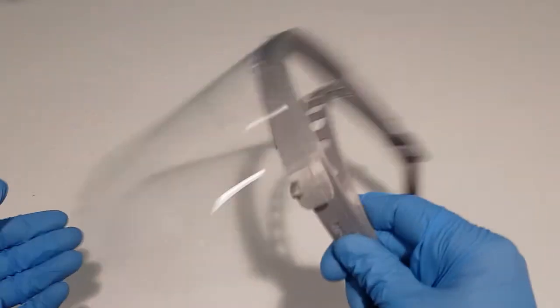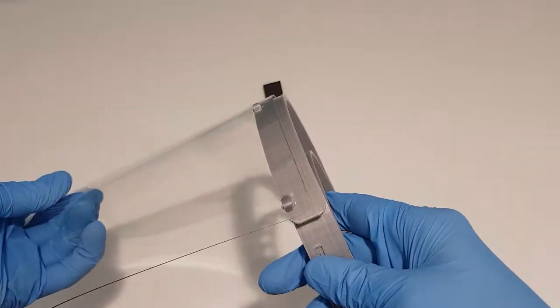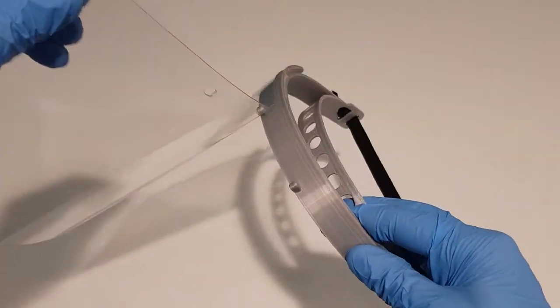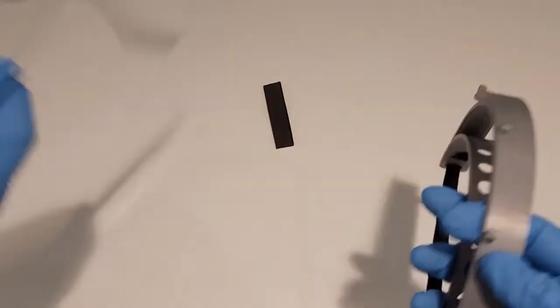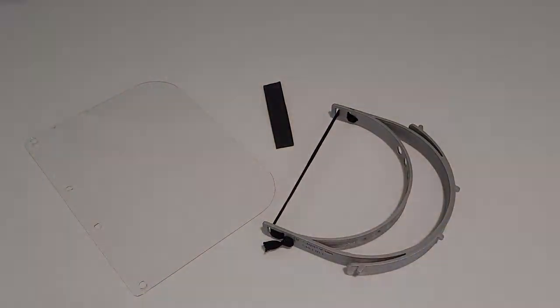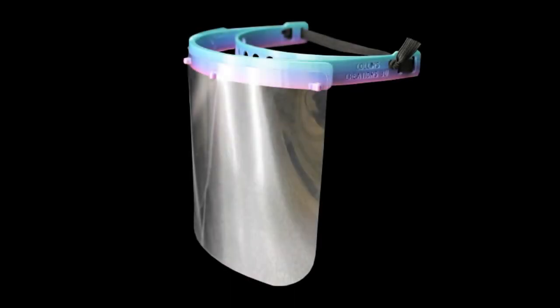The headband is flexible enough to aid in manipulating the pins into the holes to create a firm fit. Continue onto the other side of the headband using the same approach. Straighten the headband and avoid severe bending of the face shield throughout. The face shield and the headband should form a rigid mechanical bond once assembled and should not wobble or detach without undue force being applied.